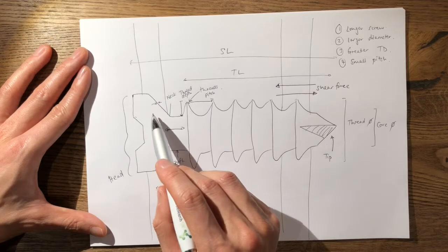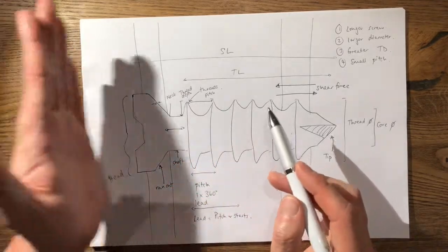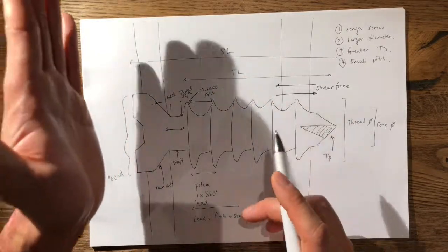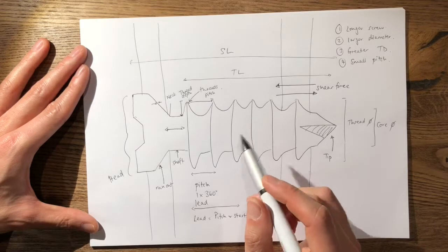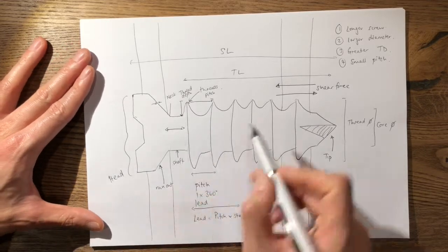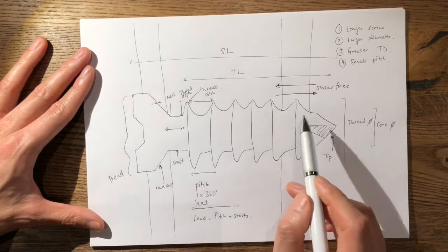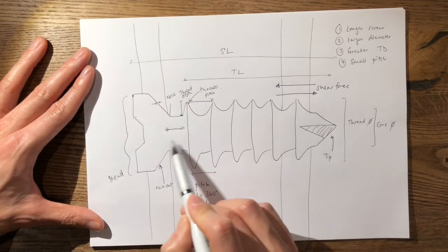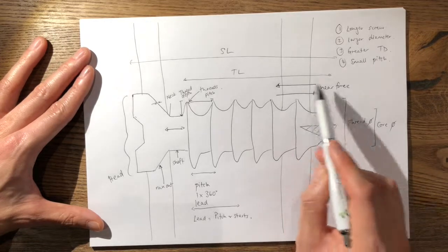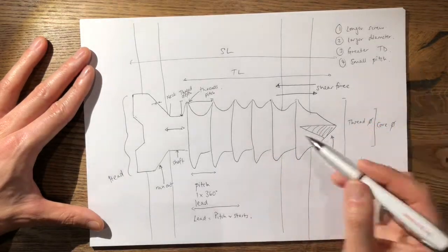The cortical screw works by causing friction onto the proximal cortex or onto the plate — as it compresses the plate onto the bone, friction holds the construct. However, as you turn the screw further, it may fail within the bone, because the tensile forces eventually exceed the ultimate strength of the shear forces at the thread interface, resulting in stripping of the screw and eventual failure.